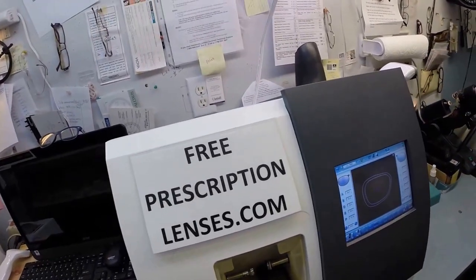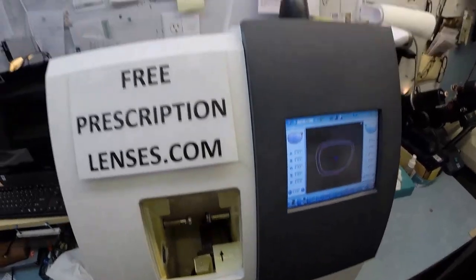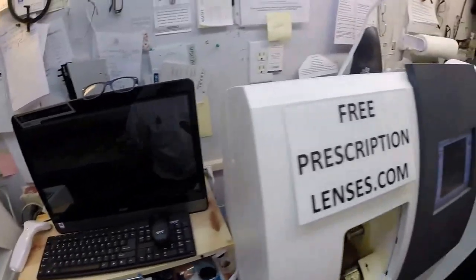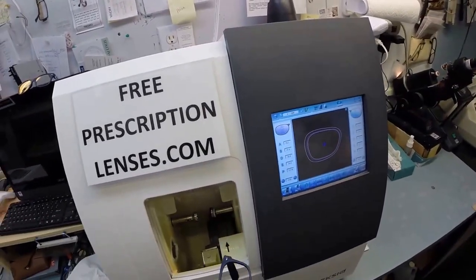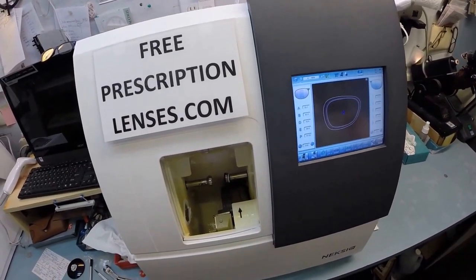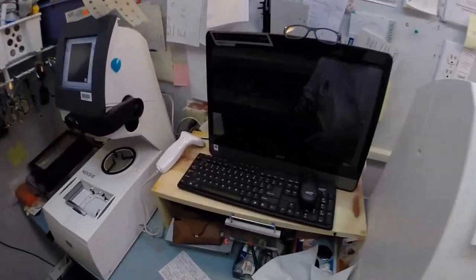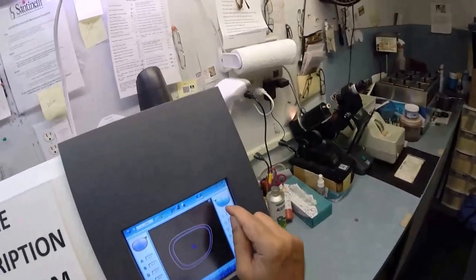I just want to make sure that it's perfect before it's mounted into your frame. It's not uncommon with your prescription to have to do this a couple times until it is perfecto. Again, use my thumbnail, scrape that off. This time I'm just going to drop it right on the floor. Why? Because I can. So again, I'm going to tuck it in at the outside corner, using my thumbs, press down at the nose, then at the bottom. Yeah, now that snaps in really good. Let's go ahead and flip that over to L and pop that in. Hit the green button.